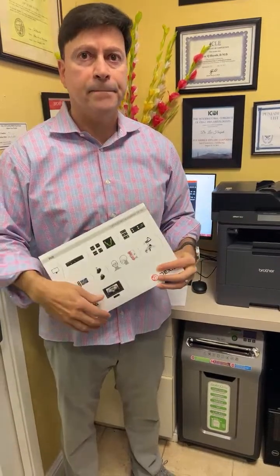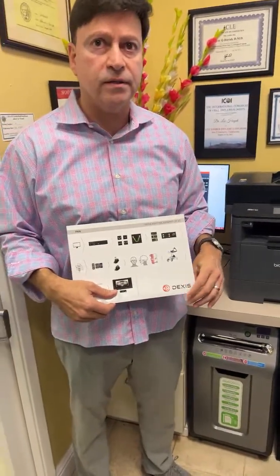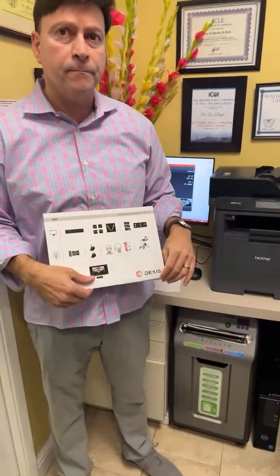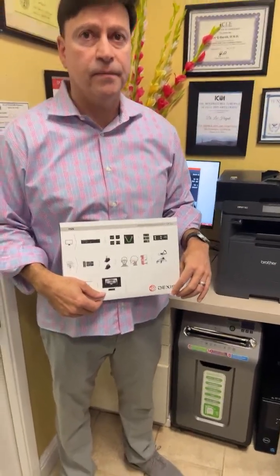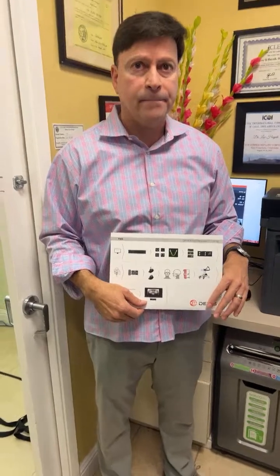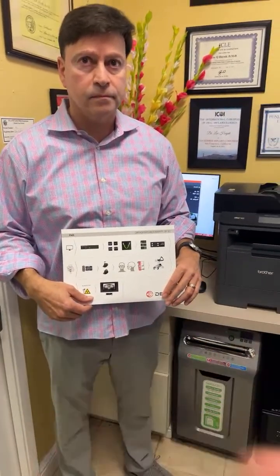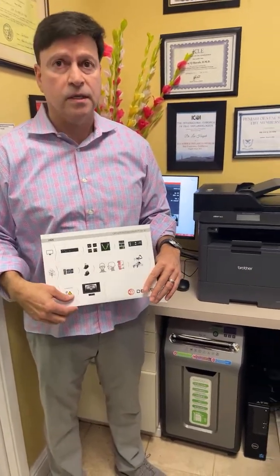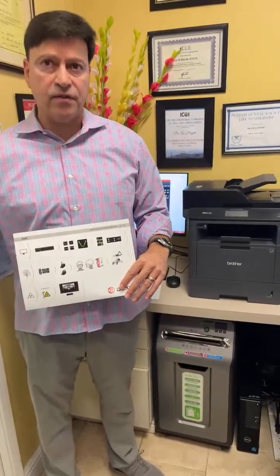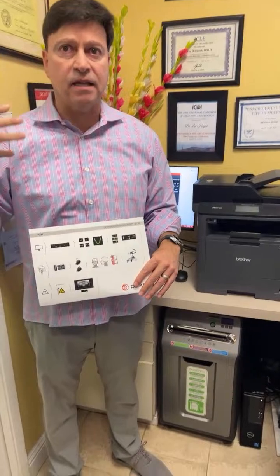Can you just take it out of the 3D? But the quality is bad, right? Yeah, it's not going to be as good. So we might have to do two, one pano and one 3D light scan. Low dose or standard, up to you. You can make a 2D out of the 3D that I showed you. It'll extrapolate it, but like you said, it's not as good quality.